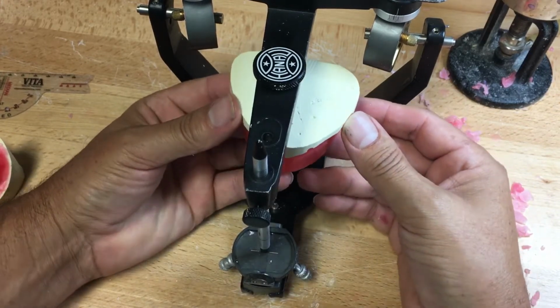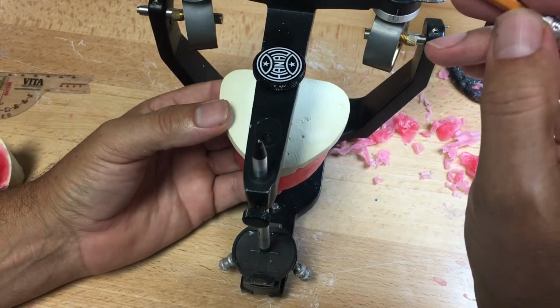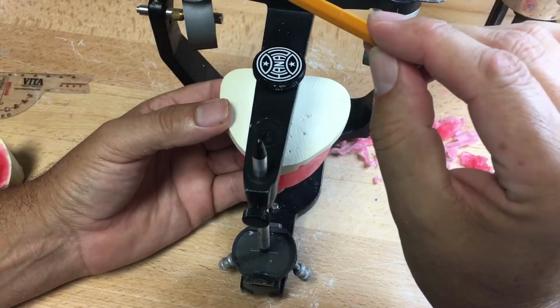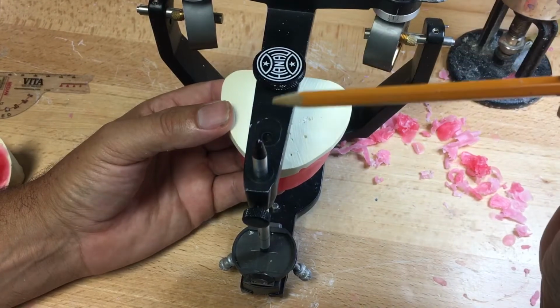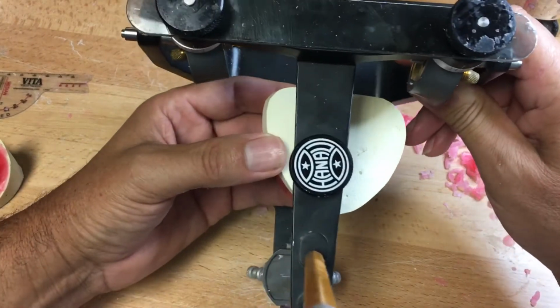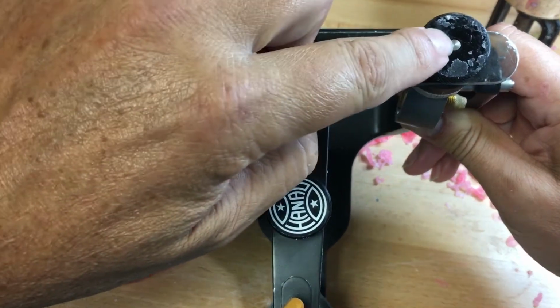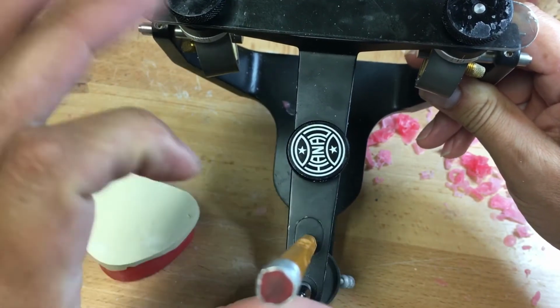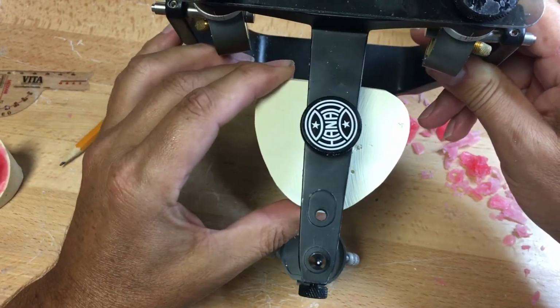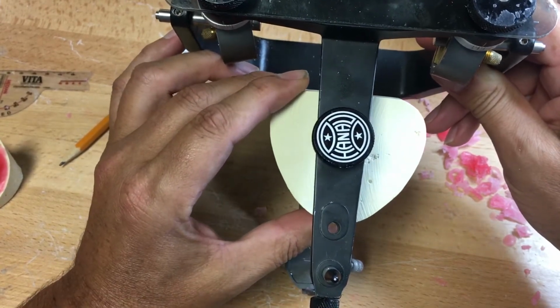This is the jig that you've created in class. And the jig is an average value to mount the maxillary in Bonwill's triangle. Bonwill's triangle is an equilateral triangle, which is 110 millimeters between 2 condyles. 110 millimeters, you can see there's a hole in your articulator here, which on most articulators, if I put it this way, is an equilateral triangle. Point A, B, C. Equilateral triangle. The midline of the centrals will be at the apex of the anterior part of this equilateral triangle.